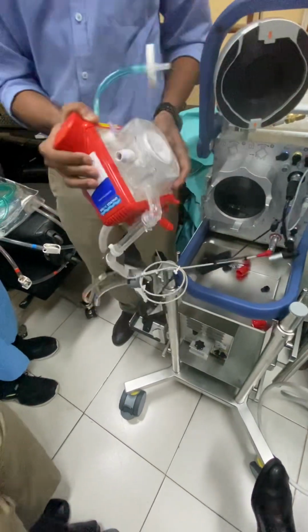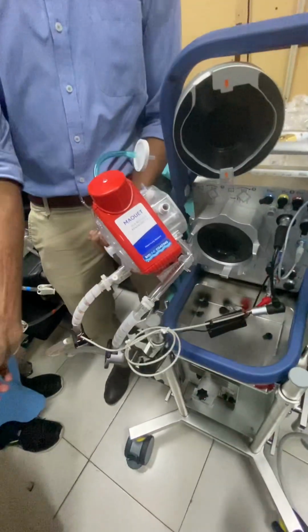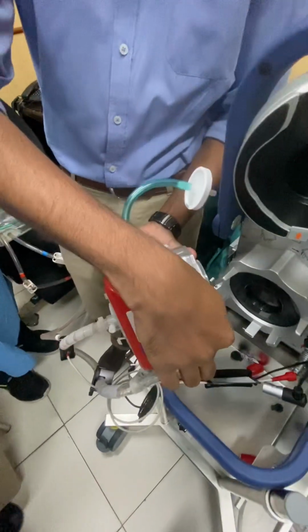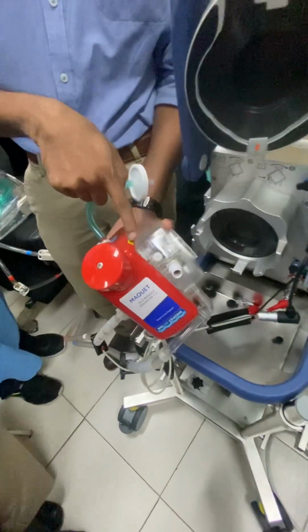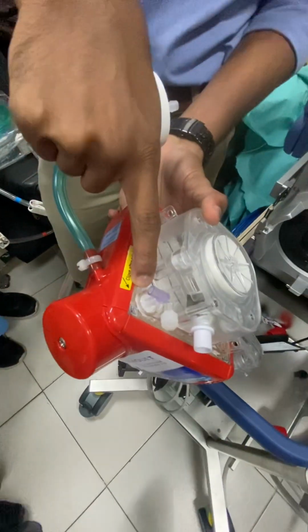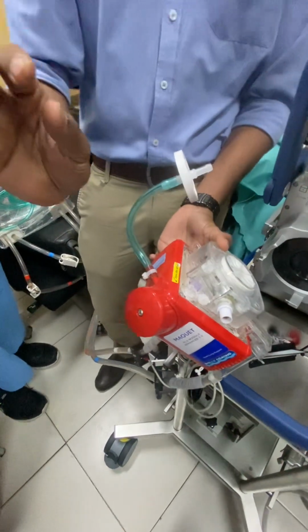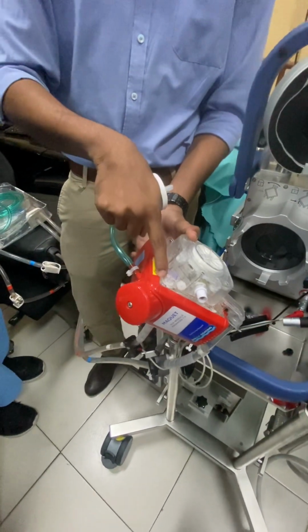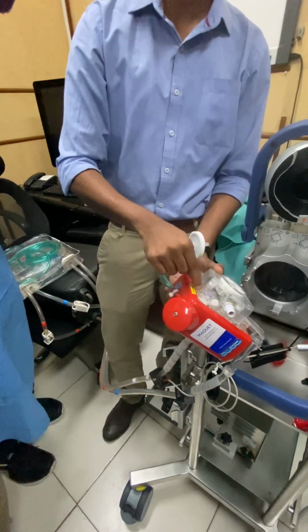as you can see, this is located in the top side of the oxygenator. So if any air is coming from the venous side, it will come into this oxygenator, but the air will always have a tendency to go to the upper side. In the upper side, we have a special port, which only lets air go out, not fluid. So this air will come here, and through this port, the air will go out. Hence, it will help us in deairing.